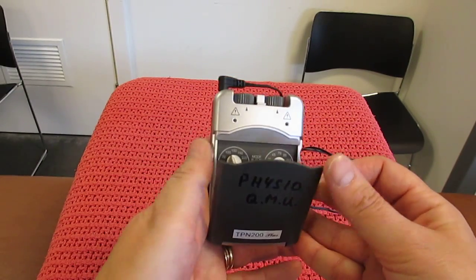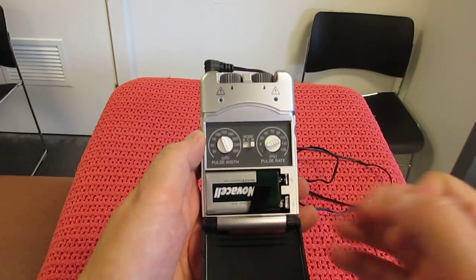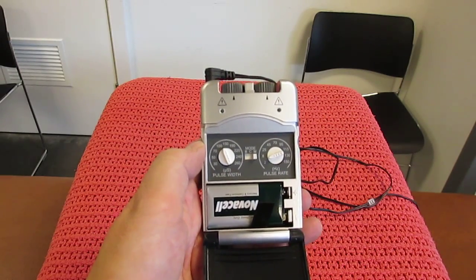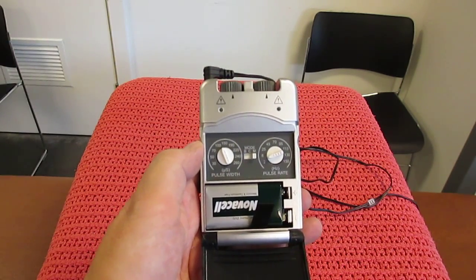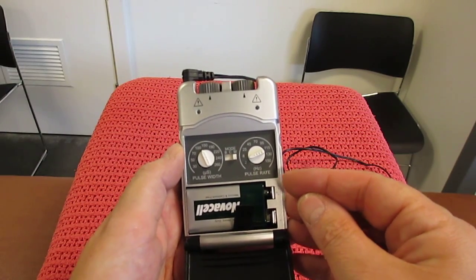By opening up and looking at the frequency or repetition rate, in this example we're going to choose 120 Hz.